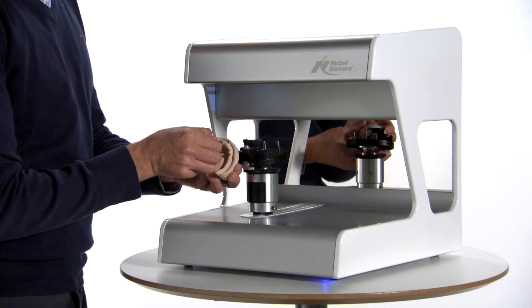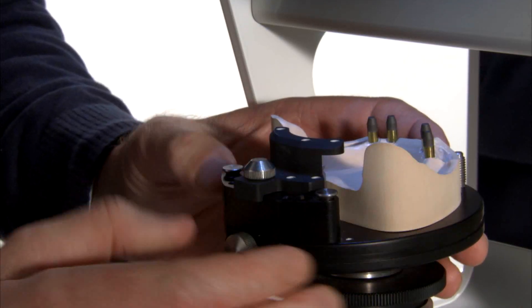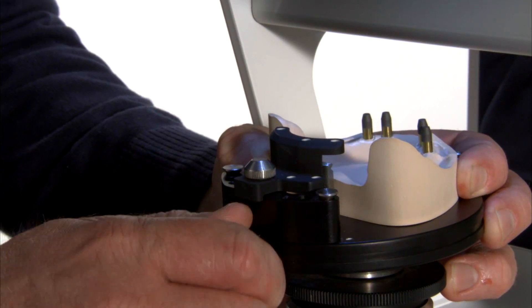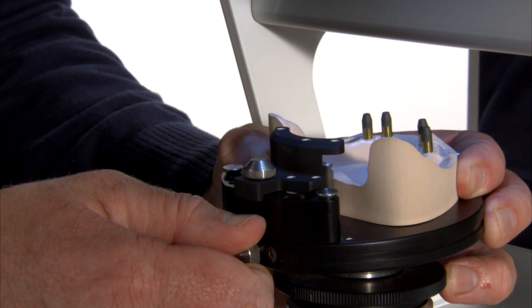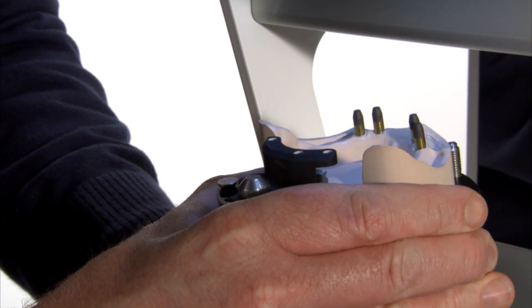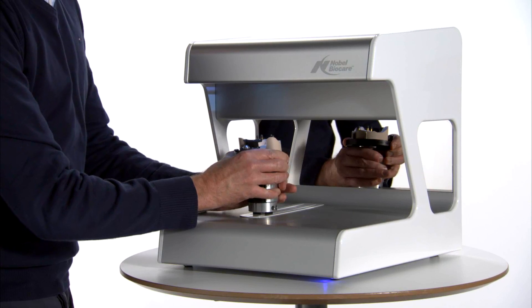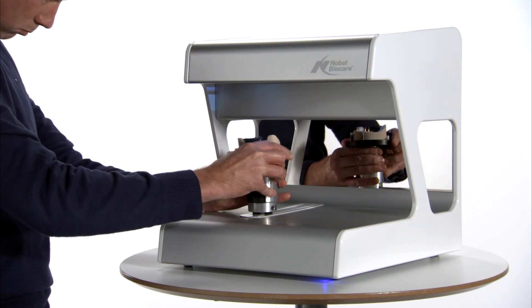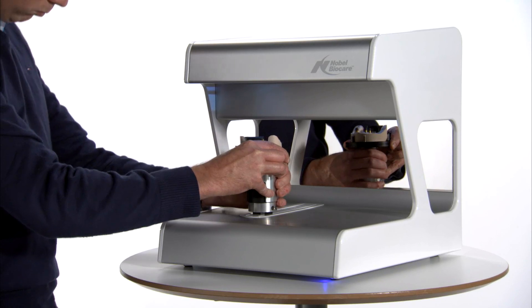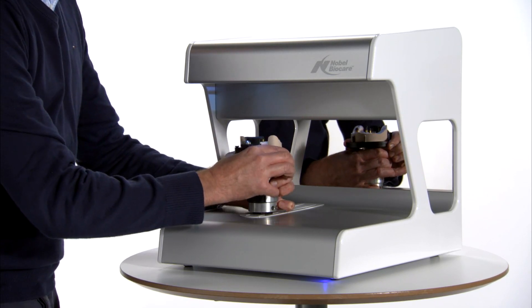Mount the model in the model holder of the scanner. Tighten the locking screw and check the stability of the model to ensure that it does not move at a later stage of the scanning process. The model needs to be orientated so that the tops of the model position locators are close to level. Turn the black dial under the model holder to lock into position.